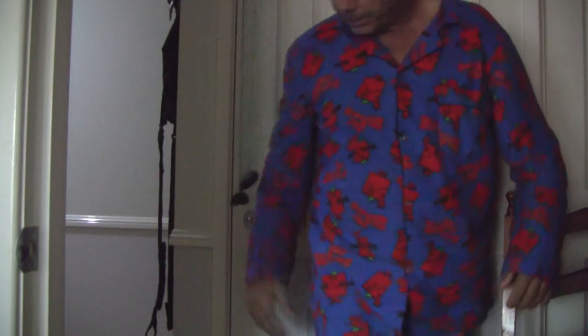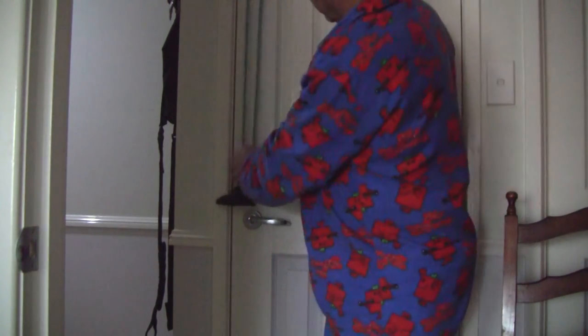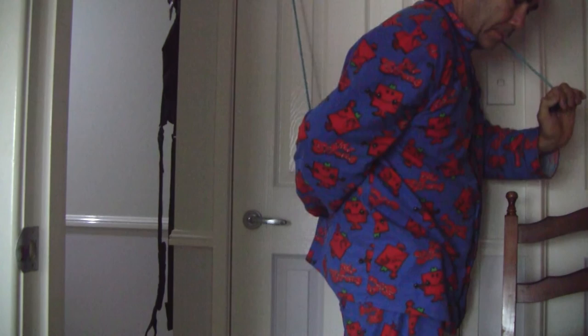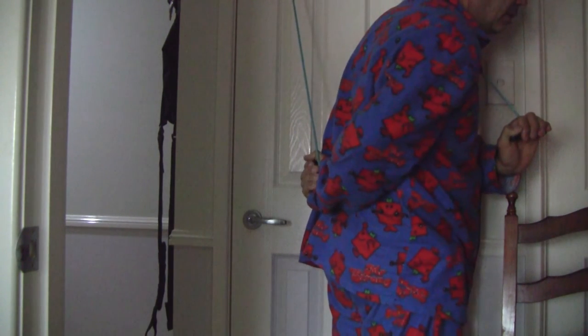Now another thing this is good for — I shift this chair. Getting the movement: being able to bring your hand up the back is the hardest part. By using this, I'm able to do that as well. So I lift it up and I hold. Look at that — six weeks. I hold it there.